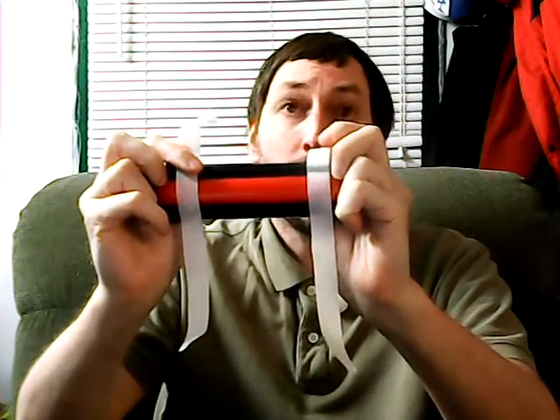This product is extremely strong, so you only want to put it on once you're sure of the placement for your LED flashlight. I would start with masking tape — just like this — and put it on your wheelchair where you want the light to go, trying it for a day or two to make sure you're happy. If you leave masking tape on for more than 24 hours, you need to buy a kind that can be removed, such as painter's tape. Otherwise the adhesive will not let go or will leave some type of residue on your light.